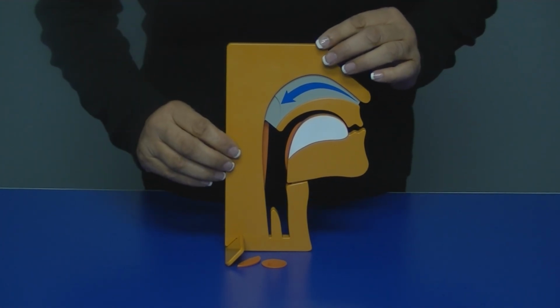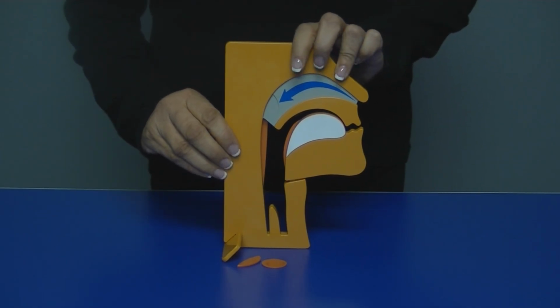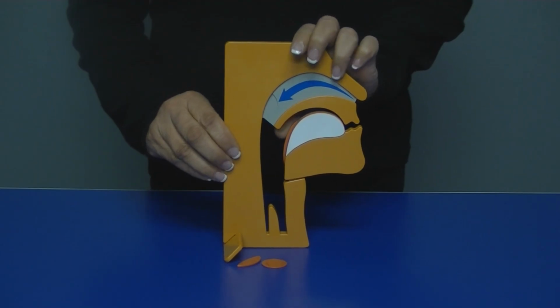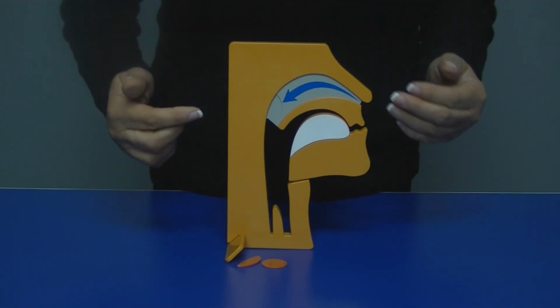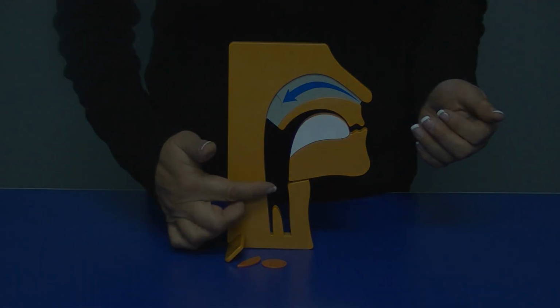Now with the mandible being forward, this will allow the shrinkage or the normalization of the soft tissue, and you can show the patient that as well. It is allowing the tissue to heal, but even more importantly, you can show the patient how much greater that airway becomes. The OSA demonstrator is one of the best educational tools to illustrate to your patients their conditions and the benefits of oral appliance therapy.